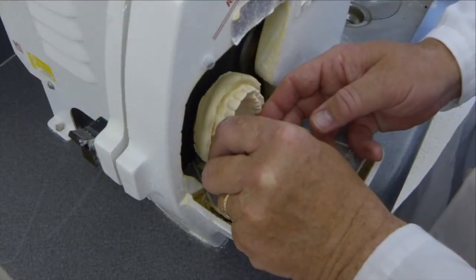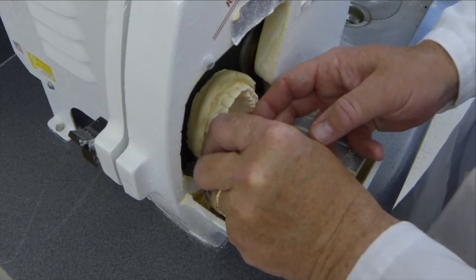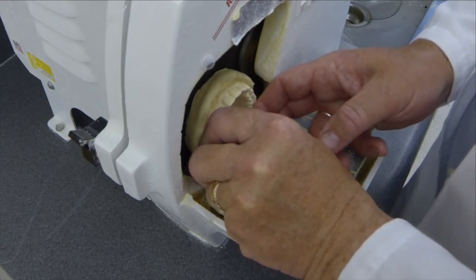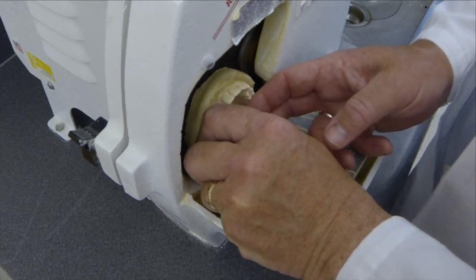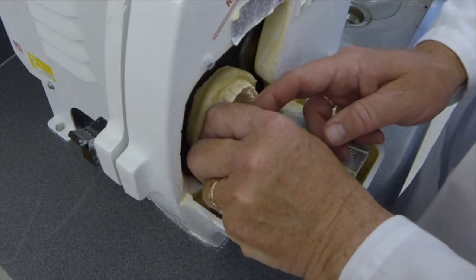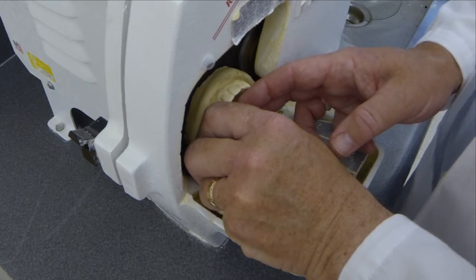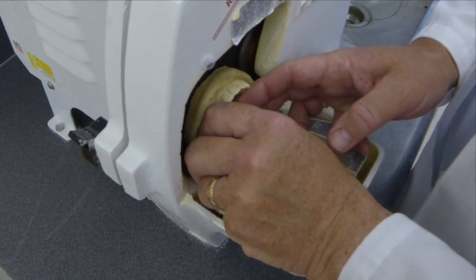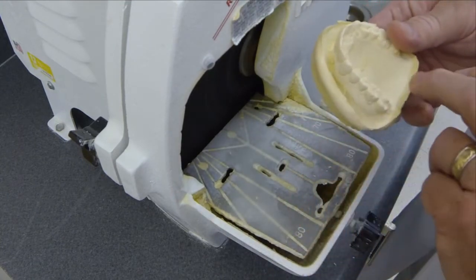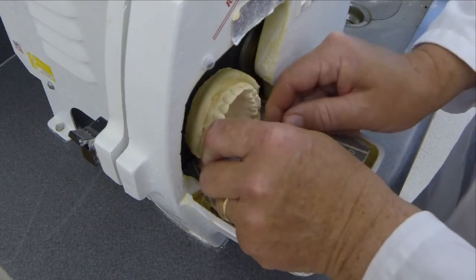Now trimming the upper model in an effort to get the base in the same plane as the occlusal plane. I'm trying to maintain a vertical position with the occlusal plane to the plane of the model grinder table, so that we can create that flattened base that we desire. We'd like the base of the model to be a minimum of 5 millimeters thick between the palate and the base. Usually 5 to 10 millimeters is desired there.